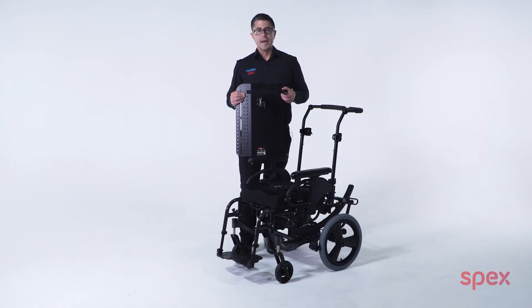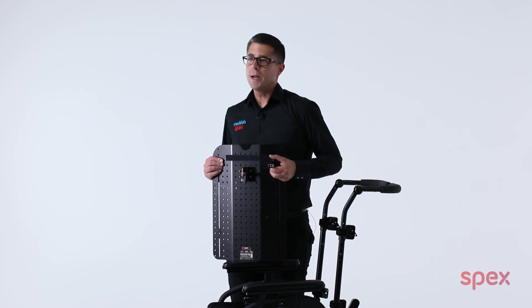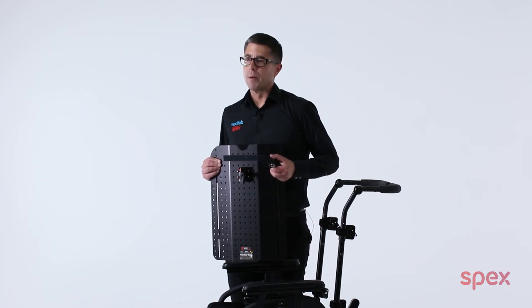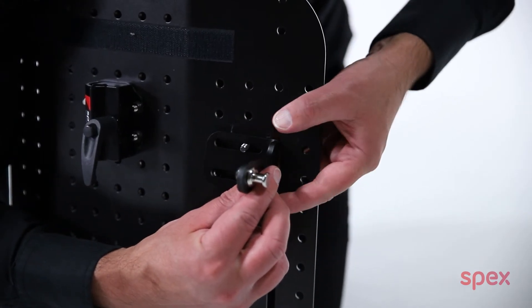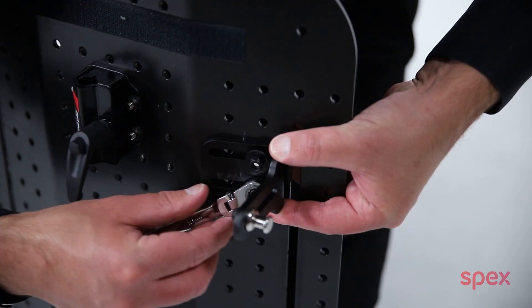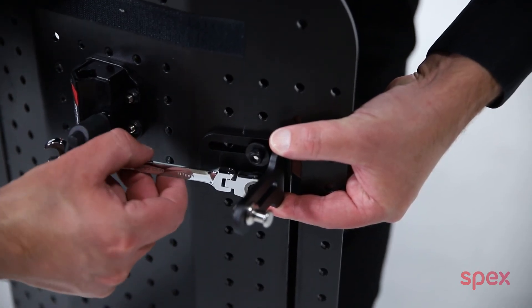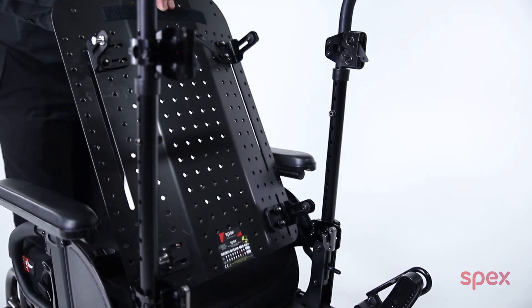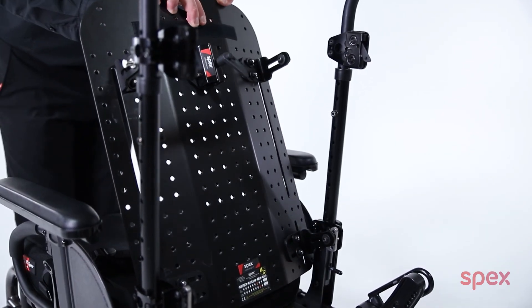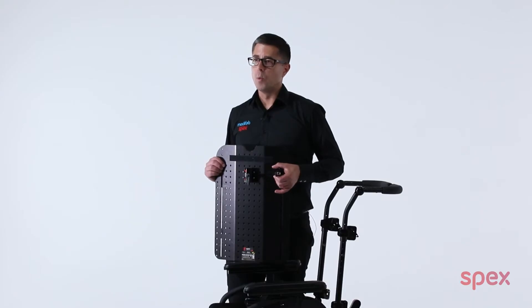The second method uses heavy duty hardware L brackets. Normally the L brackets and heavy duty L brackets are installed in the vertical back shell slots. However, because the heavy duty L brackets have two mounting slots, this allows the brackets to mount into the hold positions on the inside of the vertical back shell slot. The result is the shell can be installed to a narrow wheelchair.